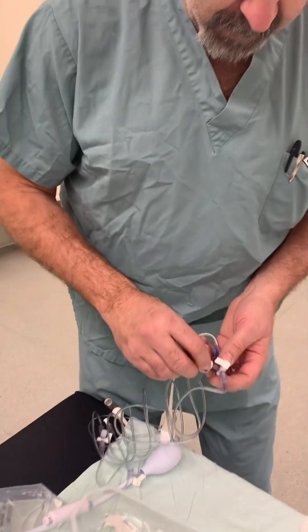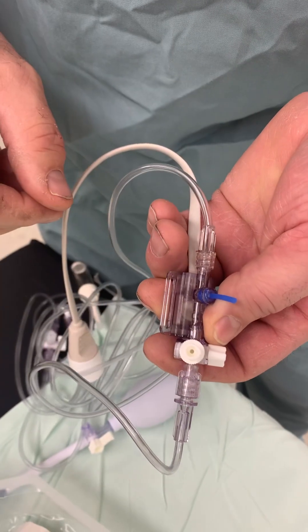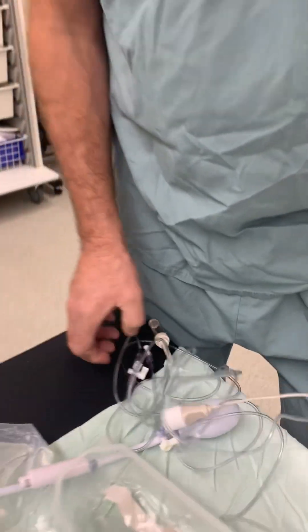So this vented cap — put a solid cap with no hole on it. There are two parts we need to do that.